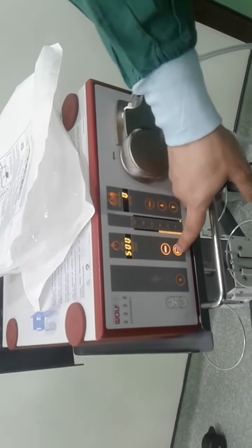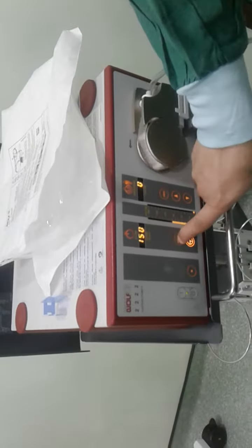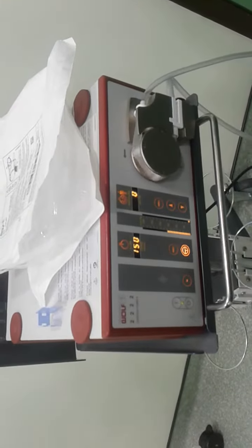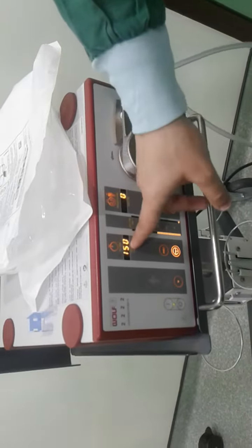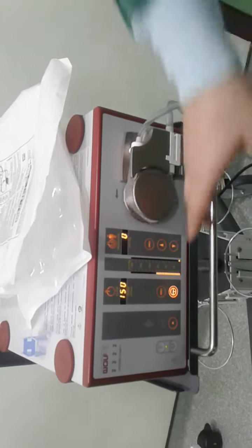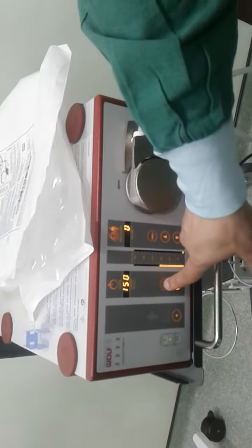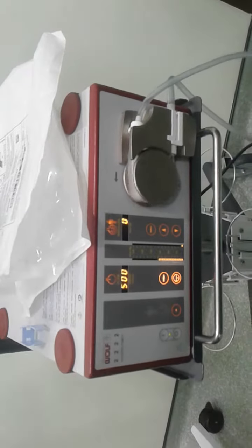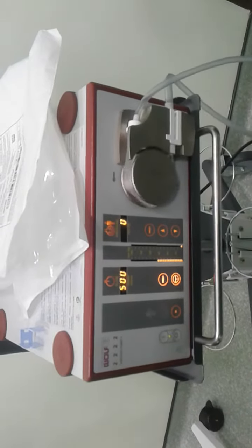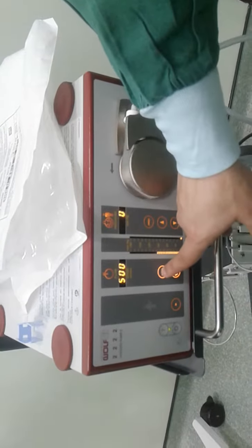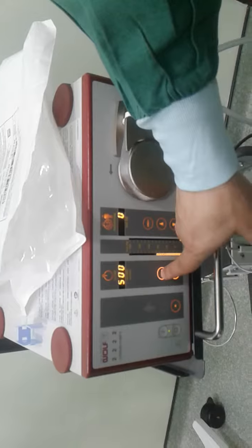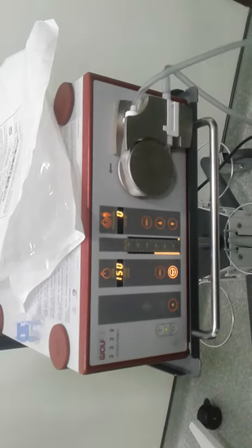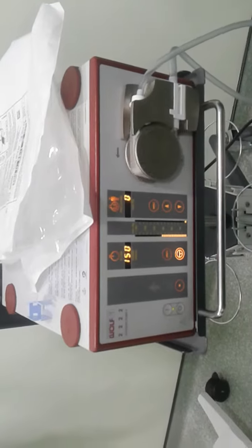So we have two speeds - 150 is the normal flow. If we want the highest flow, just press on it for 10 seconds to reset. If you want to switch to the nominal, the normal flow, you just press it. That's all.